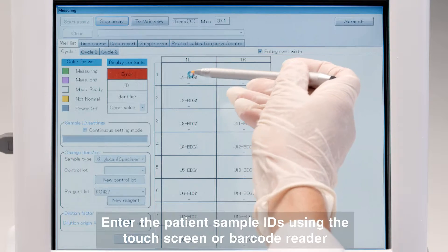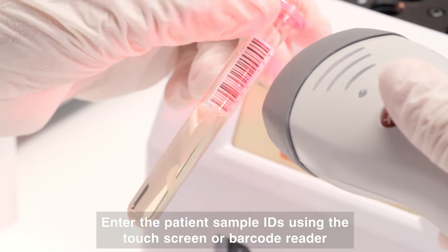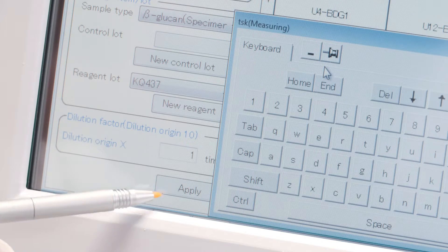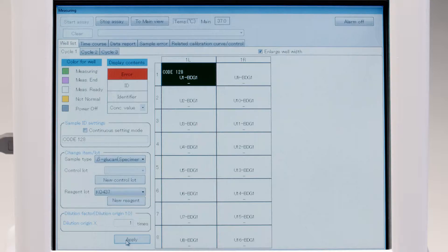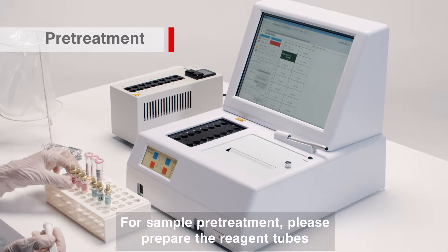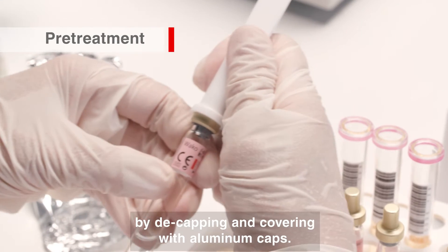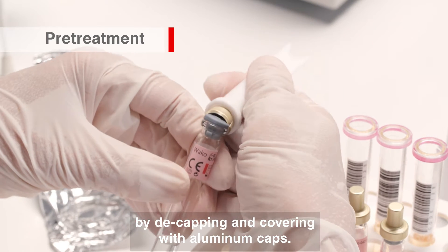Enter the patient's sample IDs using the touch screen or barcode reader. For sample pre-treatment, please prepare the reagent tubes by decapping and covering them with aluminium caps.